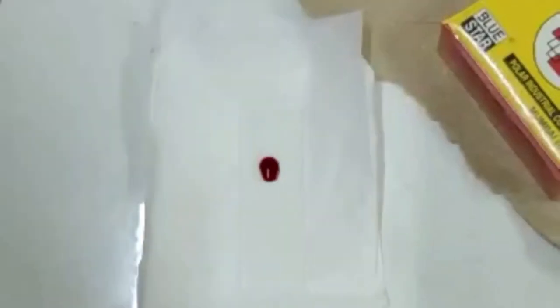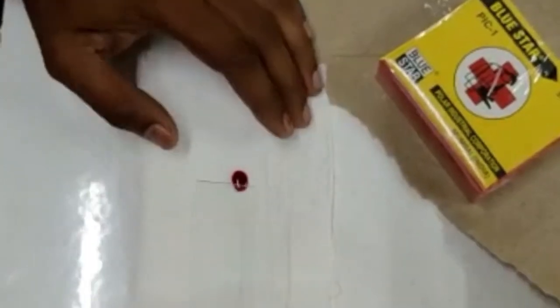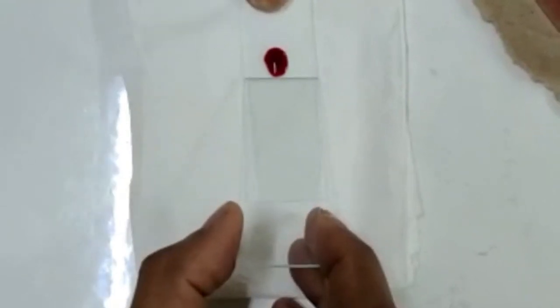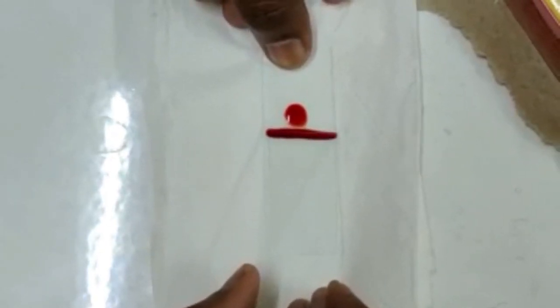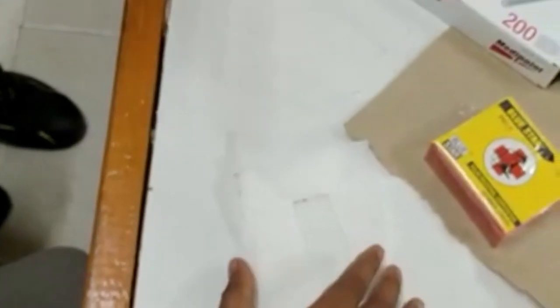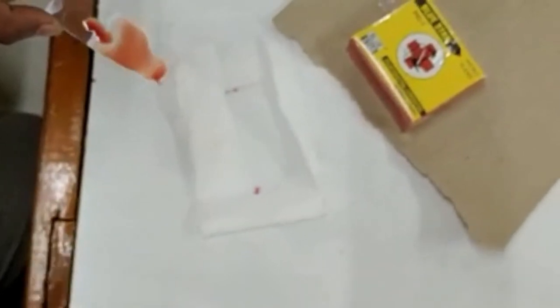Take the second slide — make sure the second slide has a smooth surface on the edges — and keep it close to the blood sample so that the blood will spread throughout the slide by means of capillary action. Keep the slide at an angle of 30 degrees and make a neat, thin smear. Allow the slide to air dry for some time, then discard all blood-stained cotton and materials in a properly allocated bin.